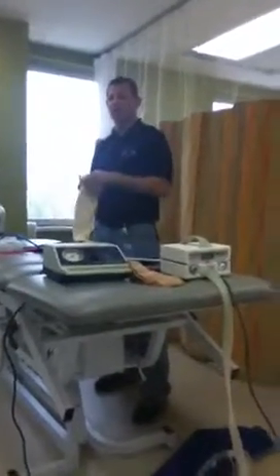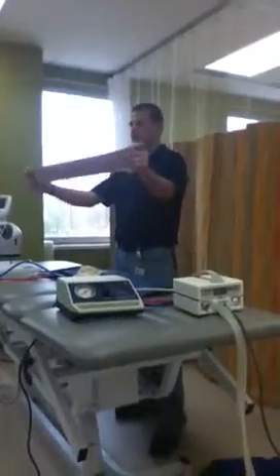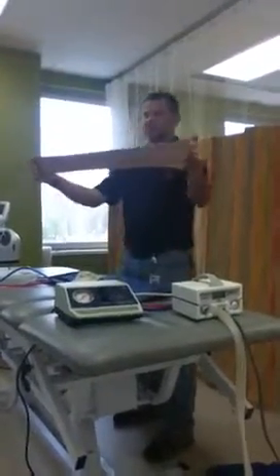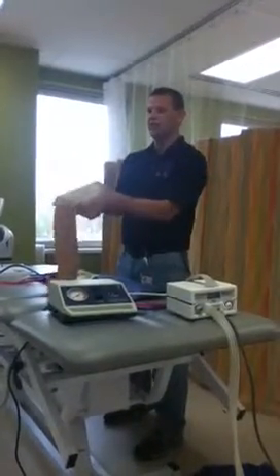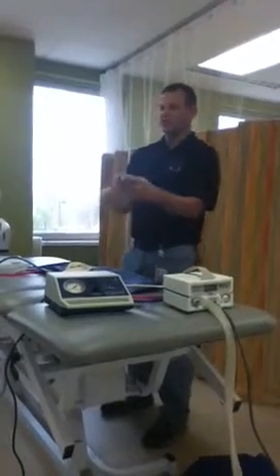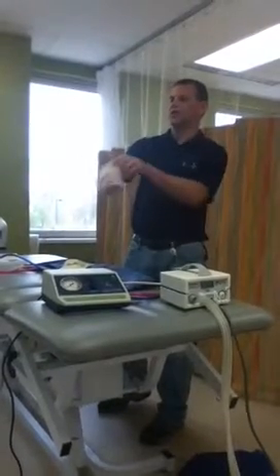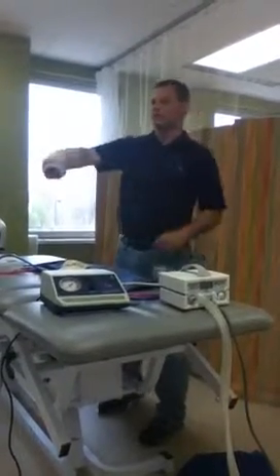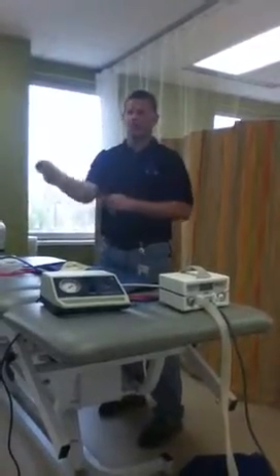Something like an embolic stocking that you might wear to prevent DVTs. This right here is a stump shrinker. It doesn't have a lot of pull lengthwise but it has lots of elastic circumferentially. We put these on limbs, usually double them up. If my residual limb is down here, we'll double it up and provide compression to try to force fluid up.